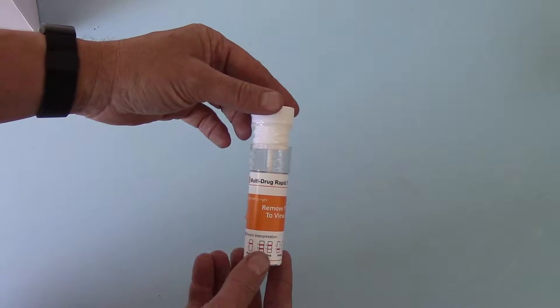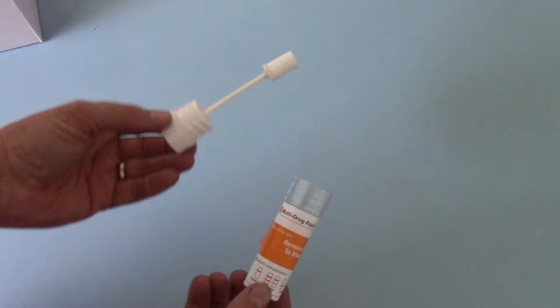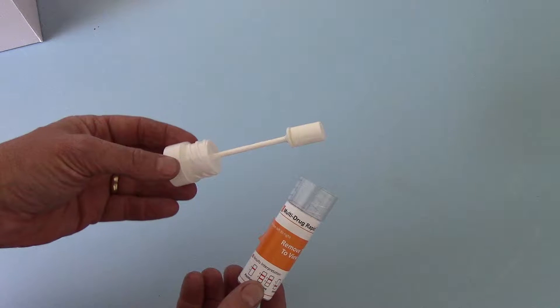This is the basic design. When you open that container, you have swabs for collection of the saliva.